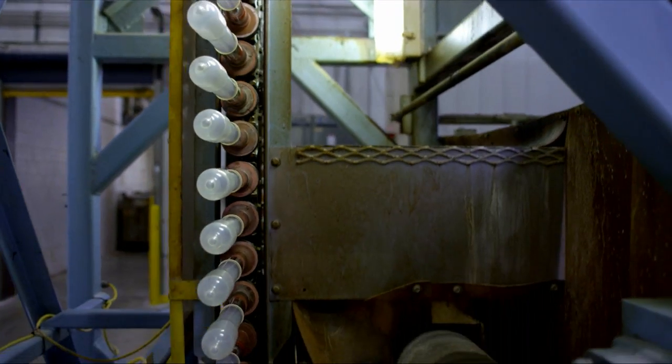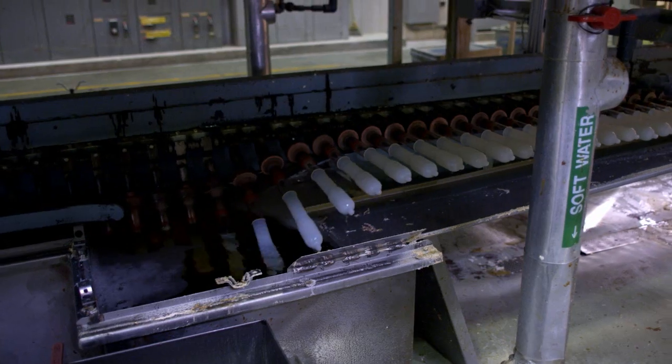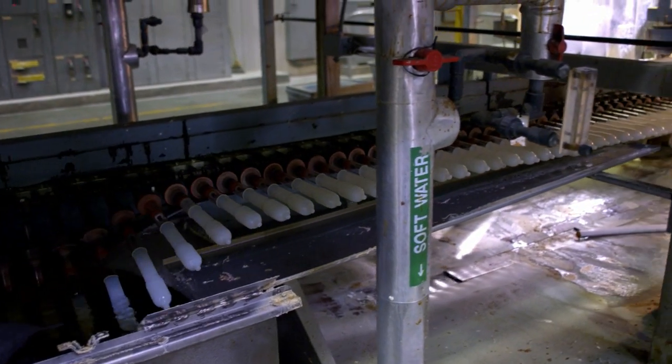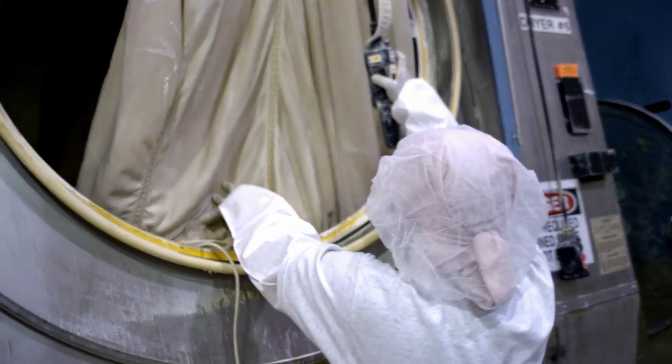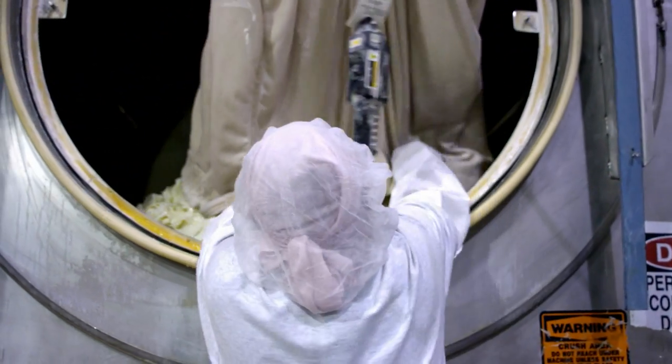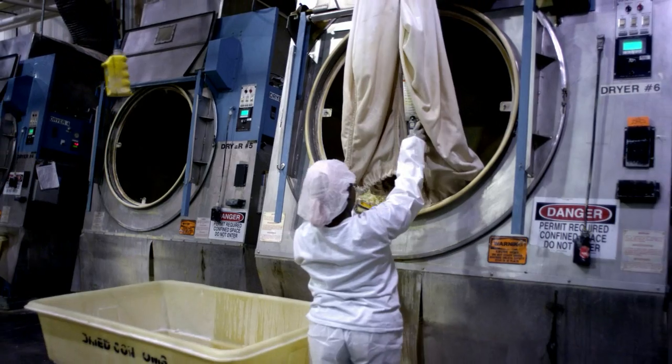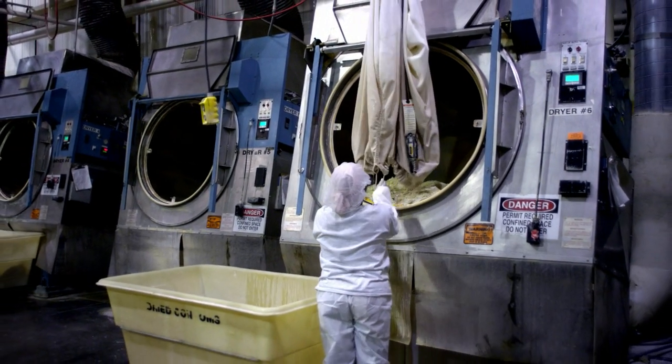The condoms are then washed in a solution that gives them a silky, smooth feel. All aspects of the manufacturing process are closely monitored and controlled to assure the condoms are consistently made to deliver a satisfying experience every time.